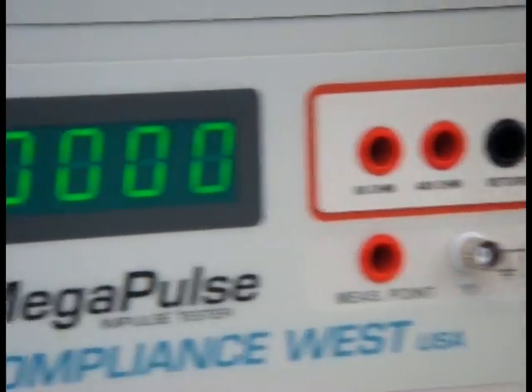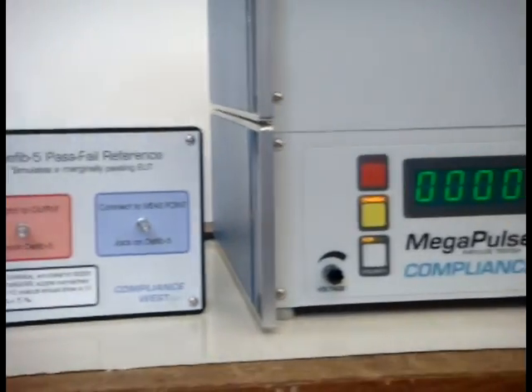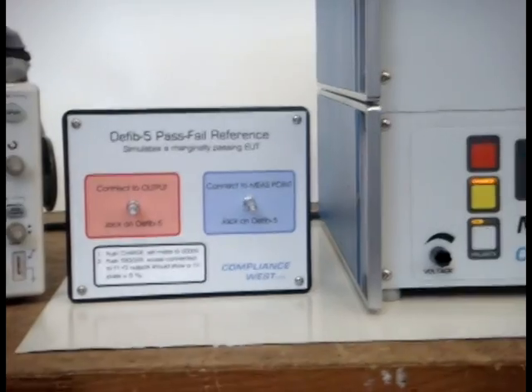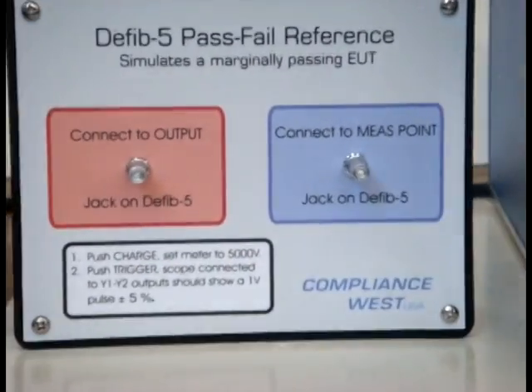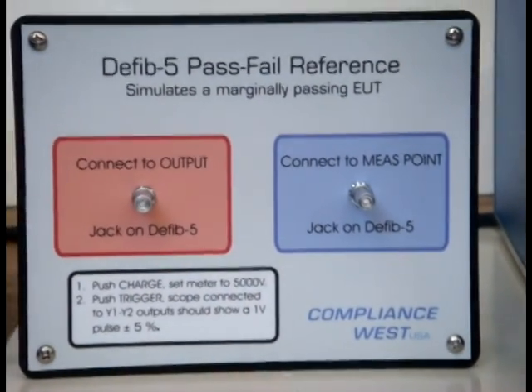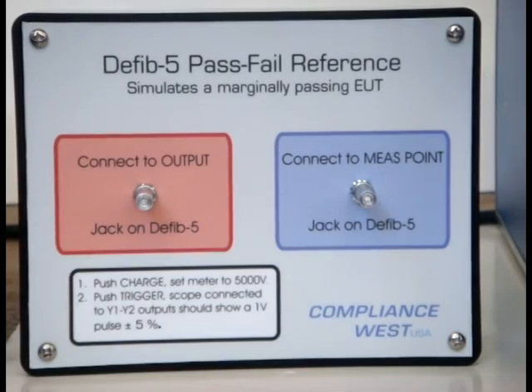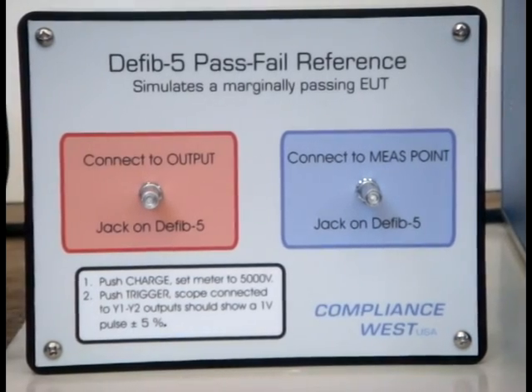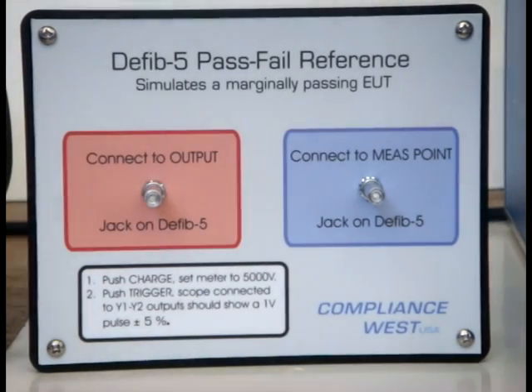We are going to demonstrate these connections, simulating the device under test with our pass-fail reference, which is designed to simulate a barely passing device under test. It will deliver one volt peak to the oscilloscope.